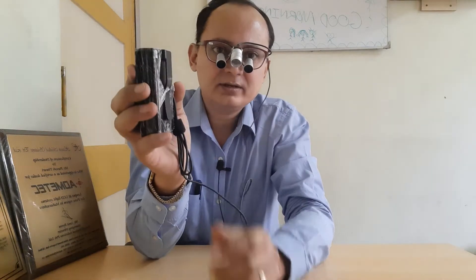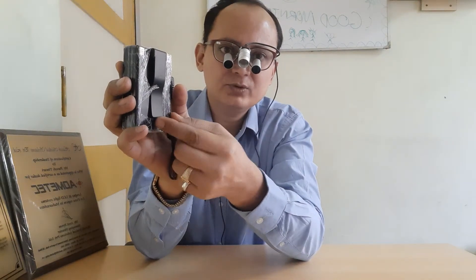The battery has got a back flap so you can either clip it in your belt or you can just put it in your upper pocket. A key feature of this light is that it is extremely lightweight — it weighs only 9.5 grams.